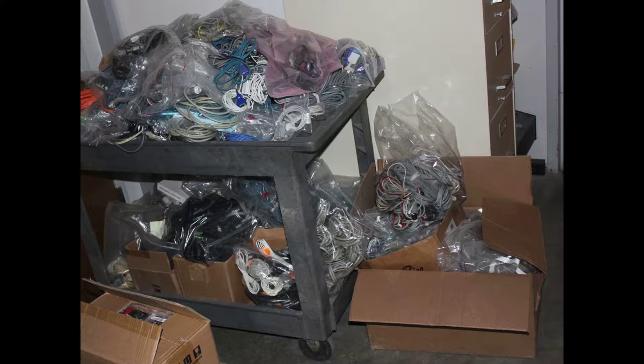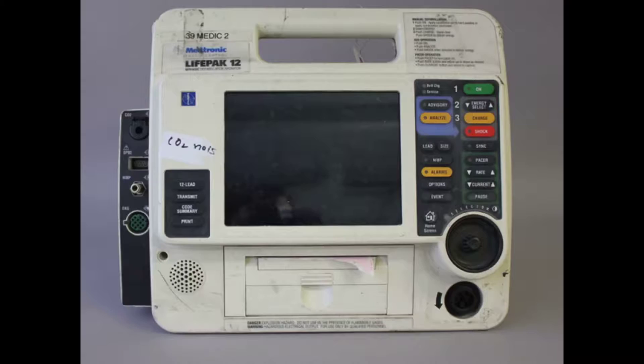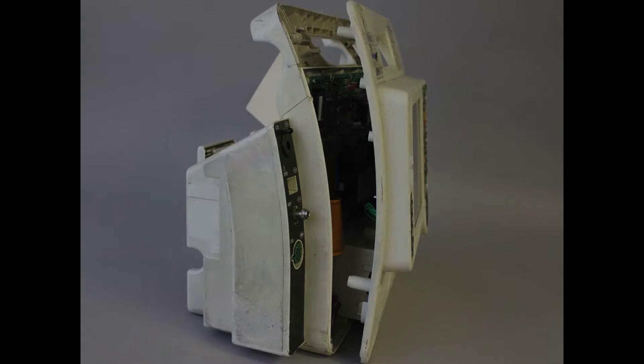All accessories are sorted out and saved for refurbishing, or discarded and sorted into containers for recycling. We staff certified biomedical engineers fully trained on the specific product being refurbished. Units have a quick quality check to assure their working order. Cosmetic appearance is documented. We identify any missing parts and assess the unit's overall condition.